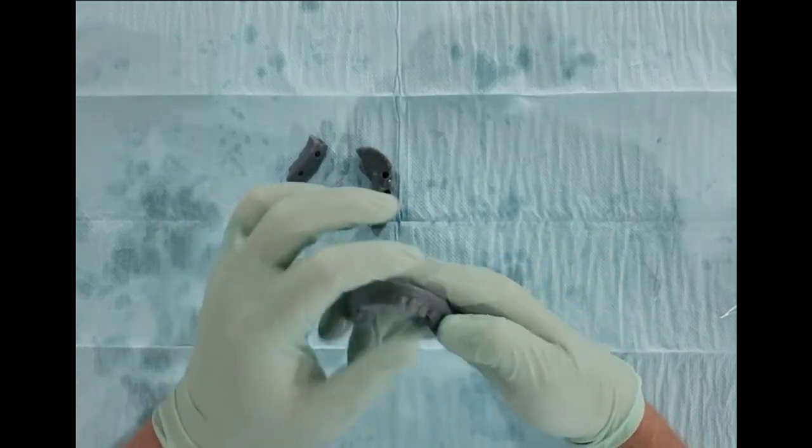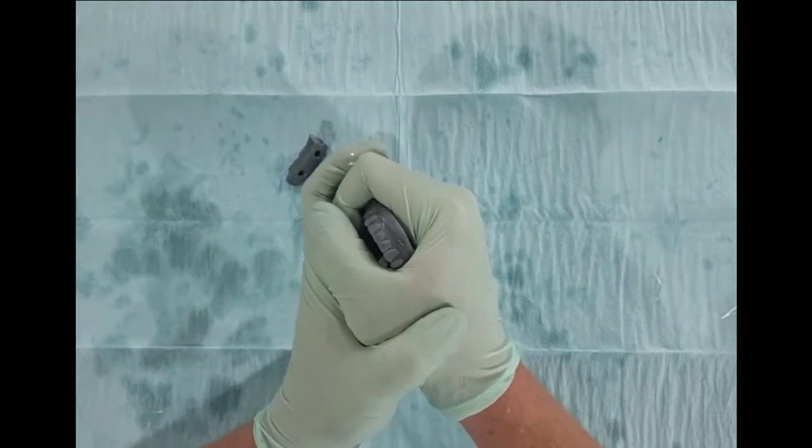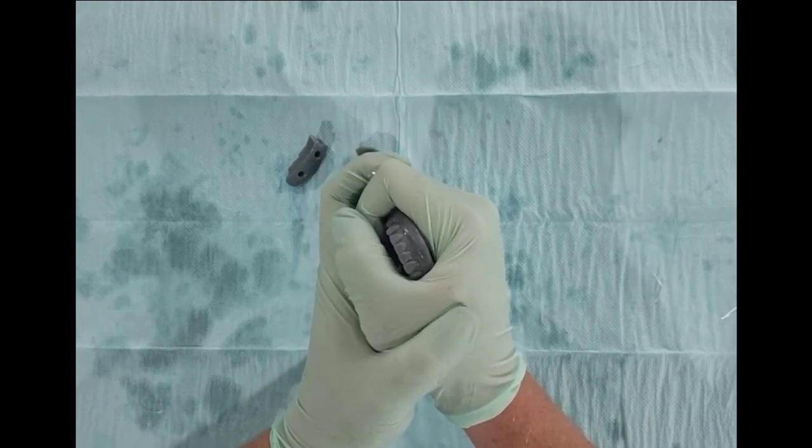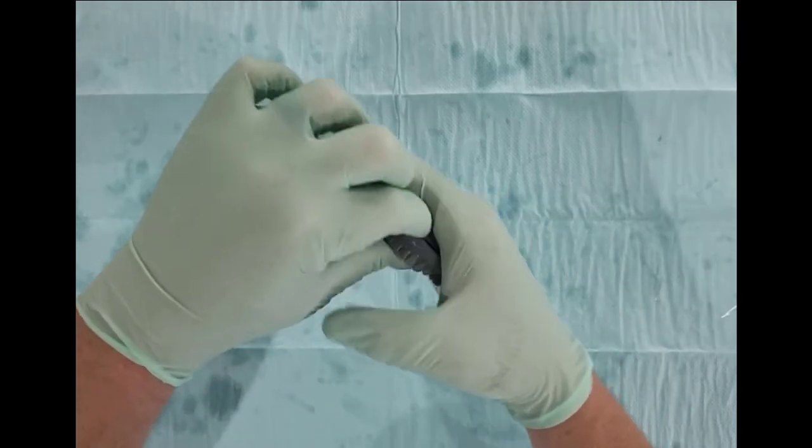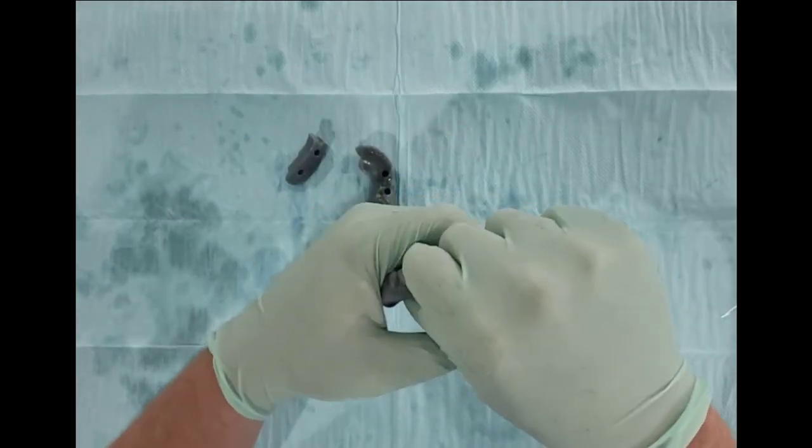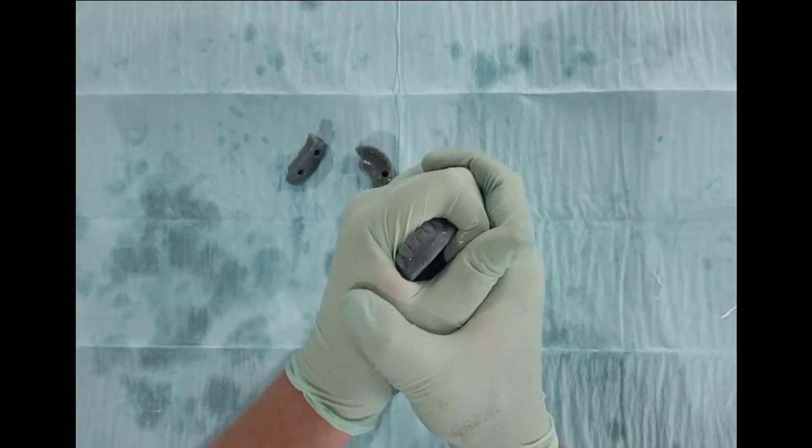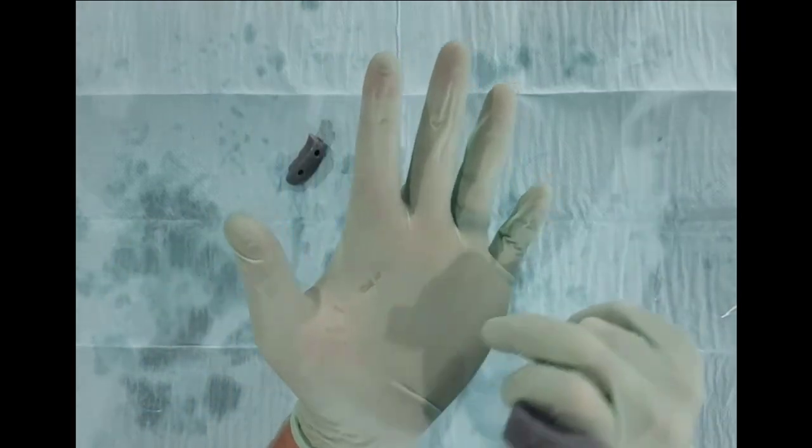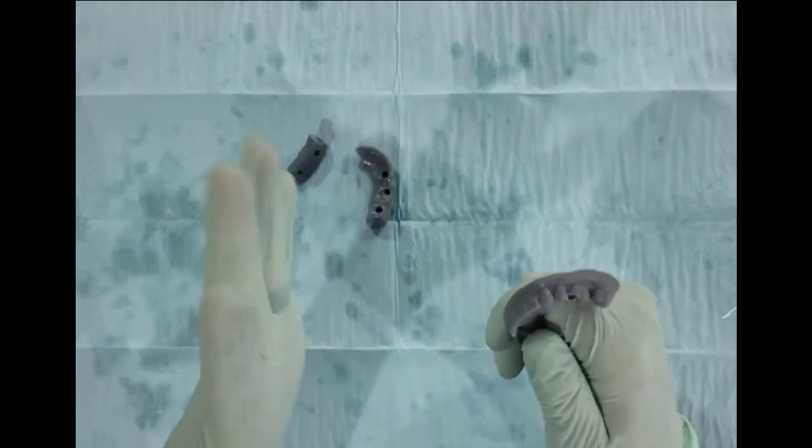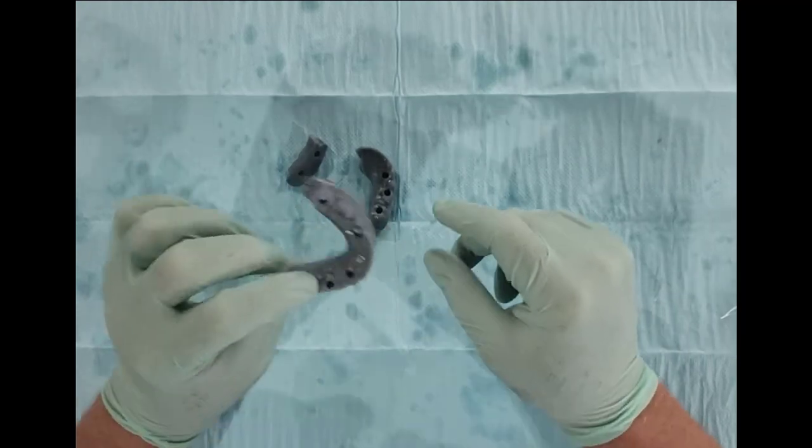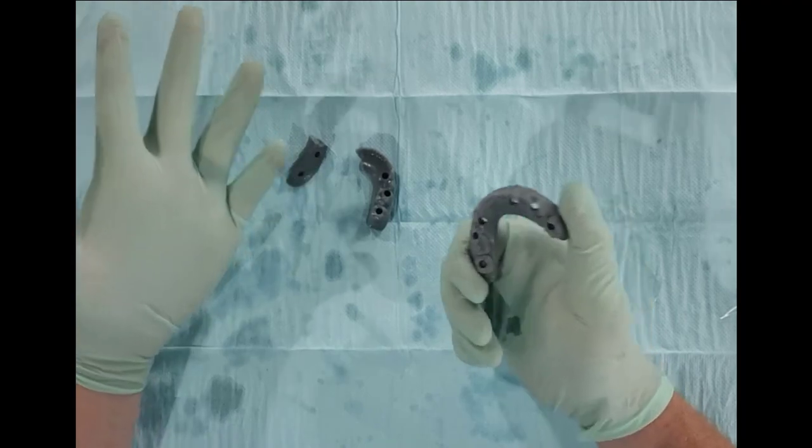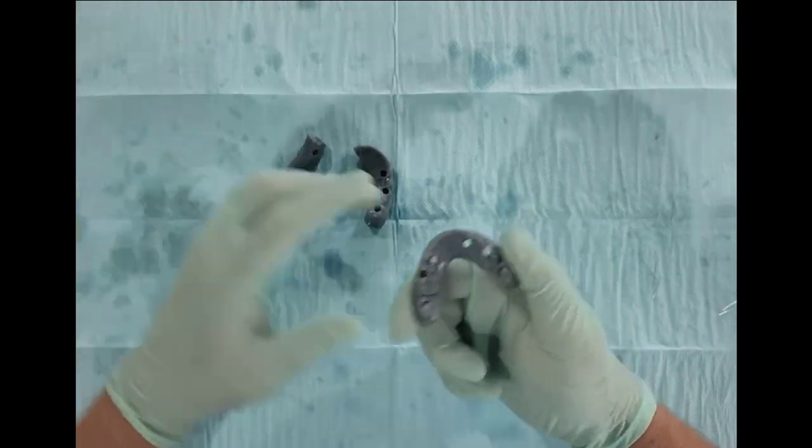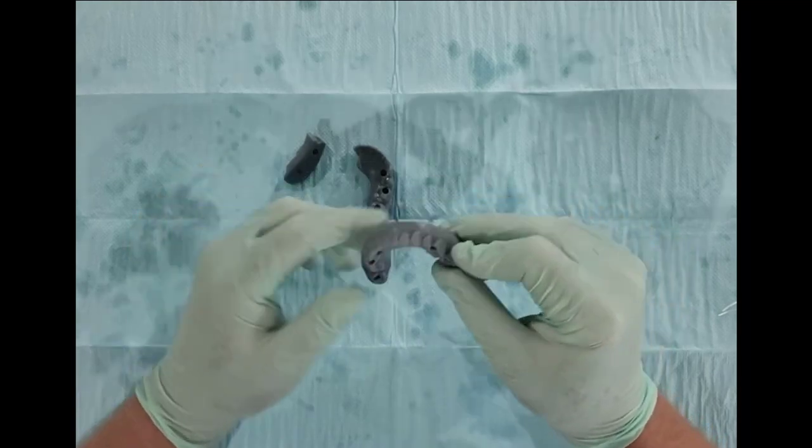I'm hoping this won't break, but we'll see. I'm going to do the exact same thing and begin squeezing. I'm not able to just yet and that kind of hurts. I'm going to switch hands. That is what felt like me drawing blood as I'm trying to squeeze this thing. It's not going to break. I don't know what the strength is, I just know it's really really high because of all that fiberglass that's embedded in here.